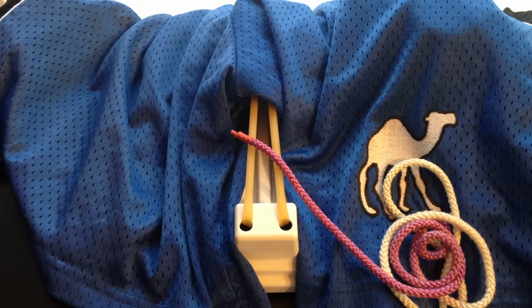Hey guys, Dr. Amadere here. Today I'm going to be teaching you how to tie the one-handed surgical knot with your right hand. The reason I like this tie is because it's fast, it's easier to tie with an instrument or needle still attached to your thread, and it makes you look good in the OR. So let's get started.